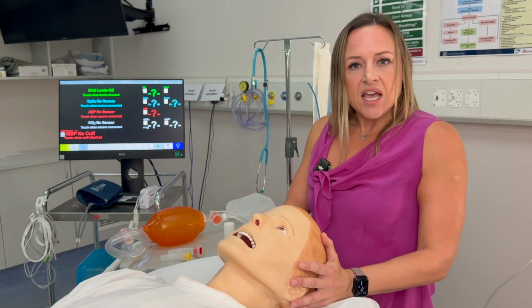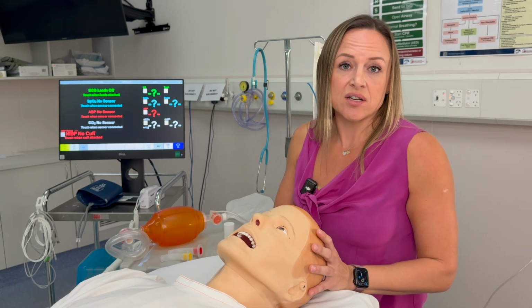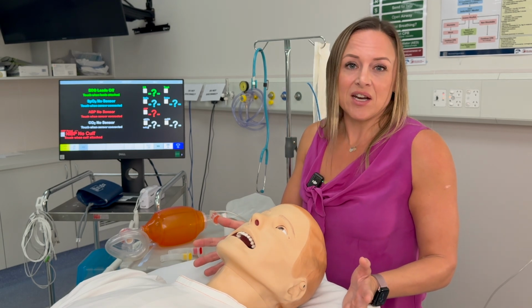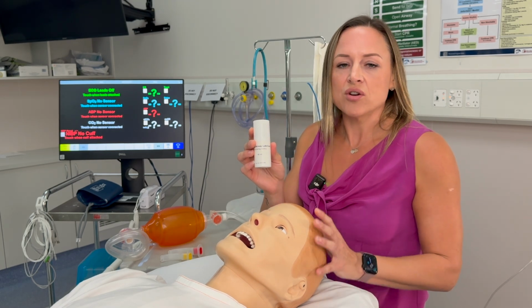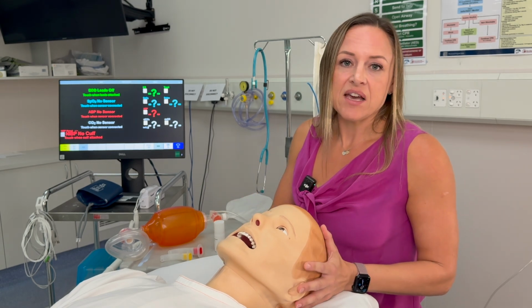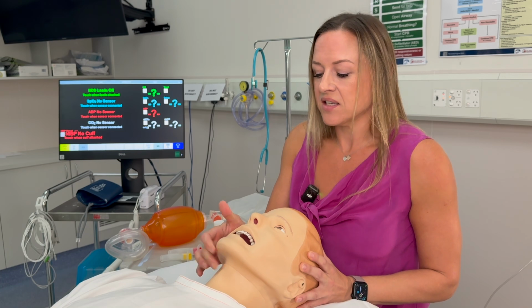In regards to his airway management, you can perform standard airway opening maneuvers, we can suction, you can pop in airway adjuncts. We can intubate Frank, and a video laryngoscope will be made available for you. He likes a size 7 ETT, and you need to use a spray lubricant, not the gel lubricants. You can pop in an i-gel, you can pop in an LMA, and they'll work effectively. And you can also perform a surgical cricothyrotomy, so use a scalpel to cut the neck skin.